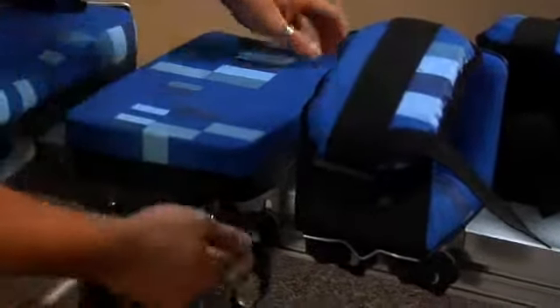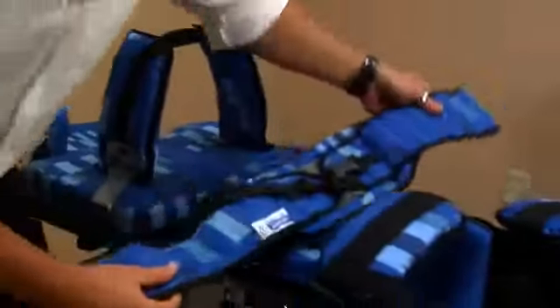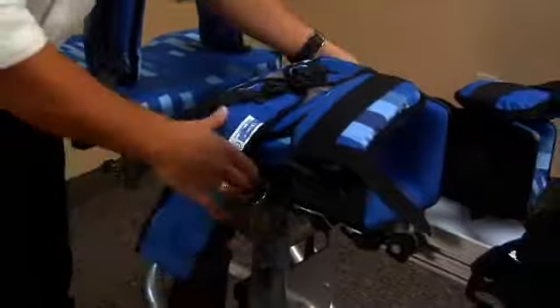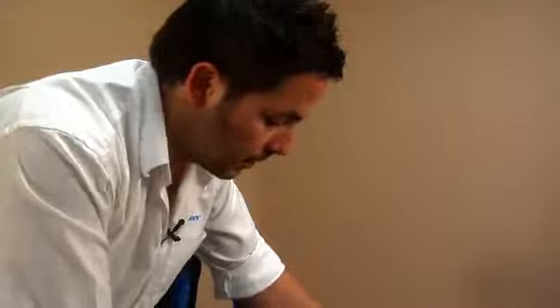You also have the ability to add on your various belts. Obviously there's a prone belt for the prone standing, and a supine belt. So there's two options of belt there, depending on how the user's going to be set up.